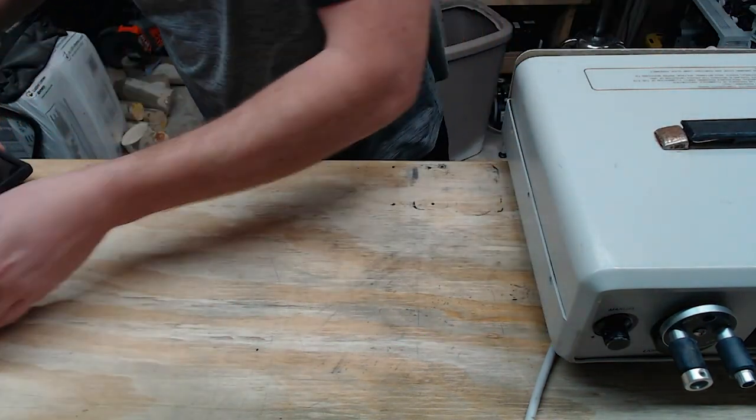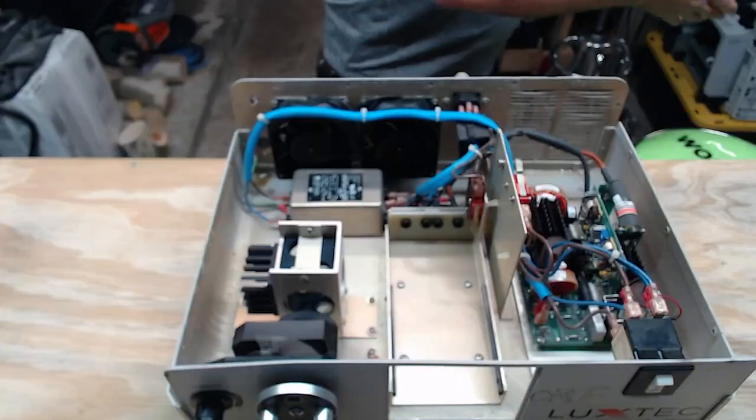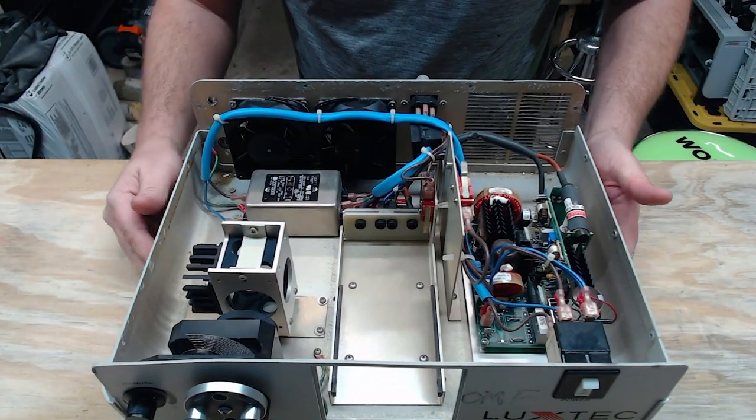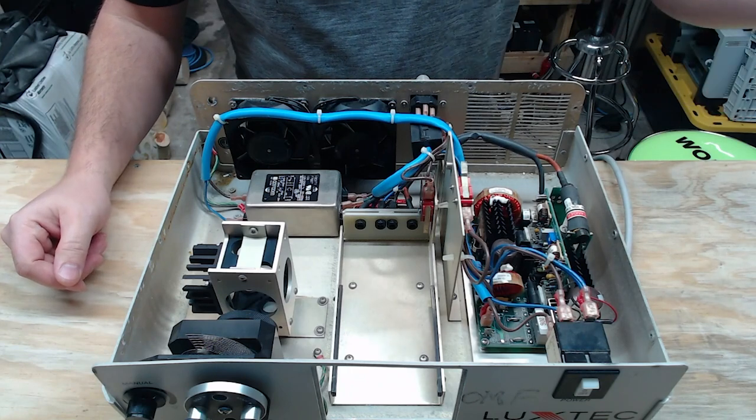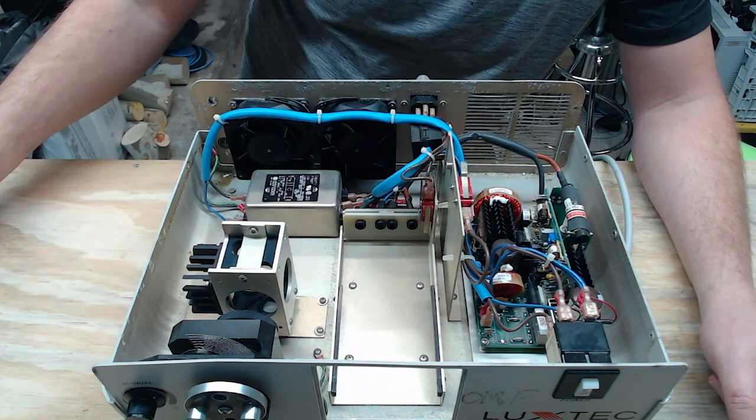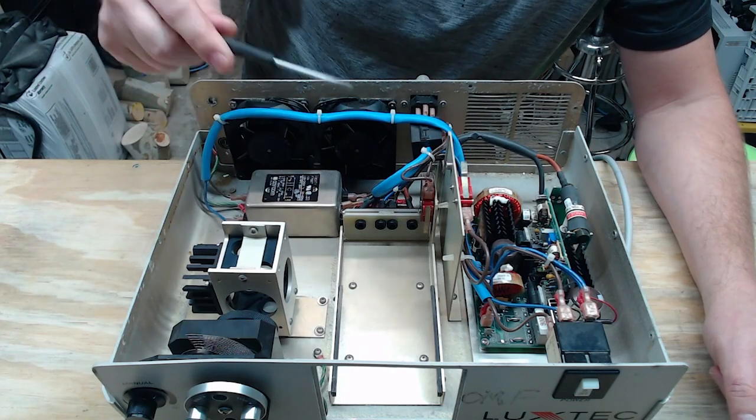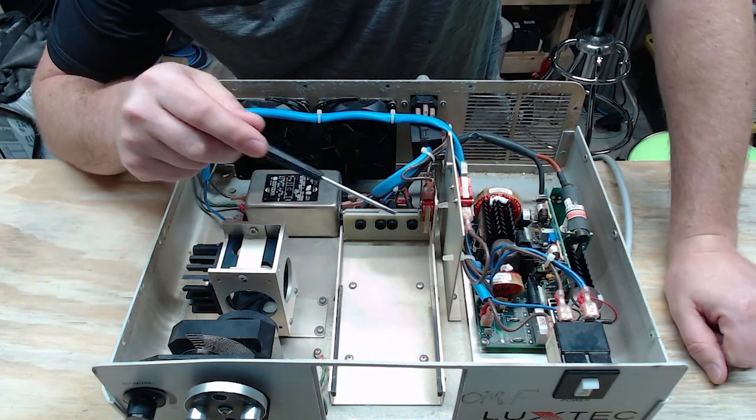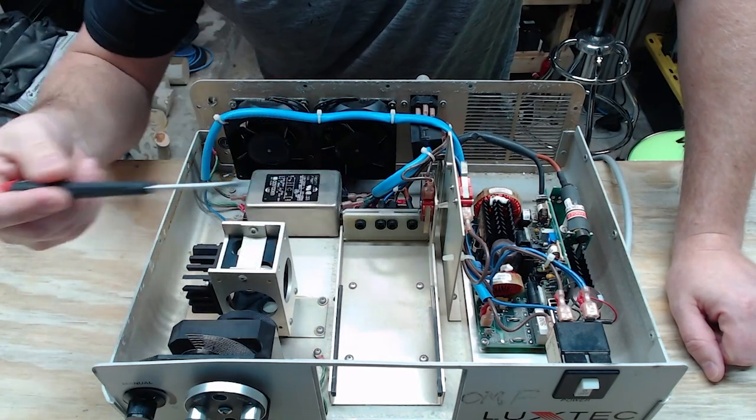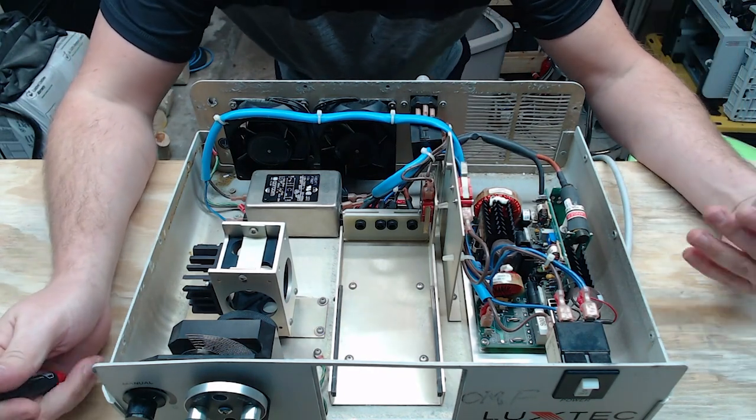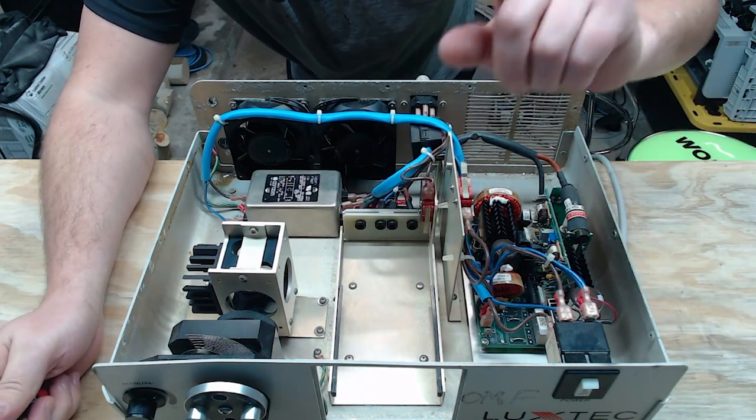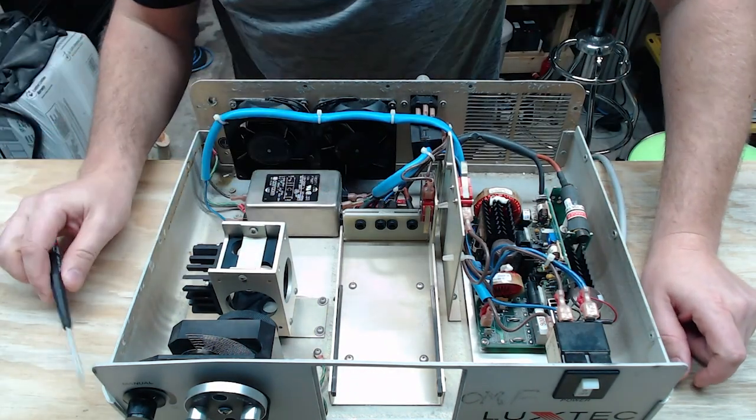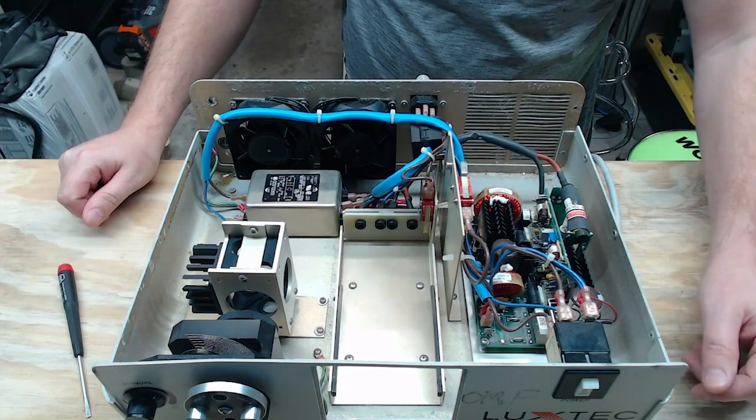All right. I know it's an oldie, but this guy has the common theme that you're going to see through all Xenon light sources. So here inside, our AC power comes in where it's interrupted by two interlocks. So I have an interlock up here at the top and I have an interlock down here that detects when the bulb is fully inserted. Now this interlock down here, I'll tell you right now, the interlock for either the door to the outside of the device or the bulb in this case is almost always going to be a problem because the users are going to complain that the device isn't powering up. So I always suggest check the interlocks on the doors or the covers because that's very common a problem.